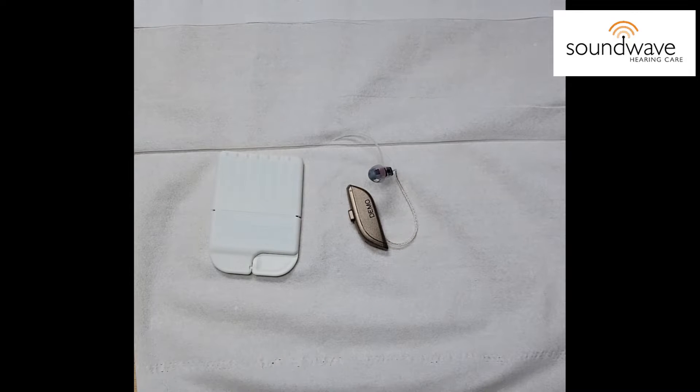For this video we're going to show you how to change your wax guard on your ReSound receiver in the canal or RIC hearing aid.